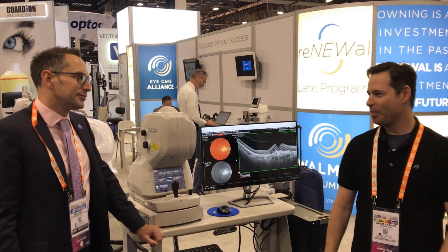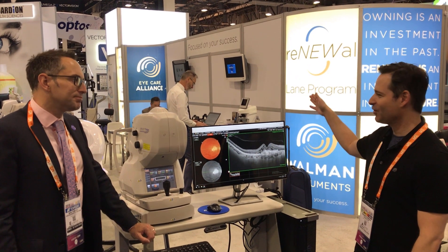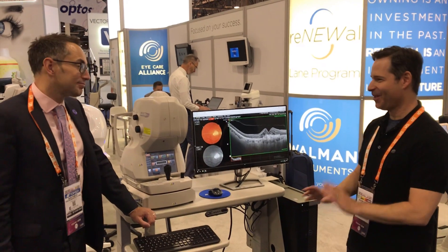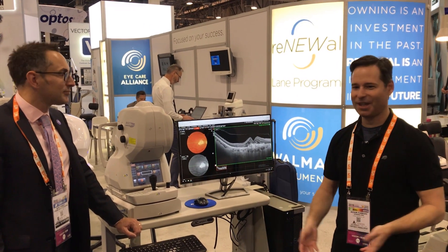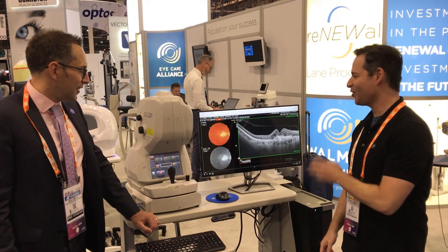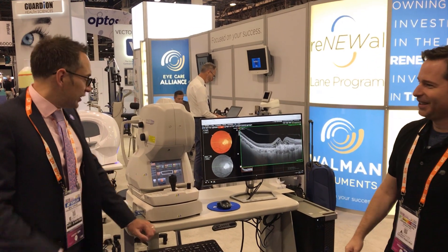A few minutes ago you showed me Maestro, and I will confess I've seen those before and used them before, so I think a lot of our viewers have seen them before. But this thing I have never seen before. So this is a Triton — can you tell us a little bit about it?